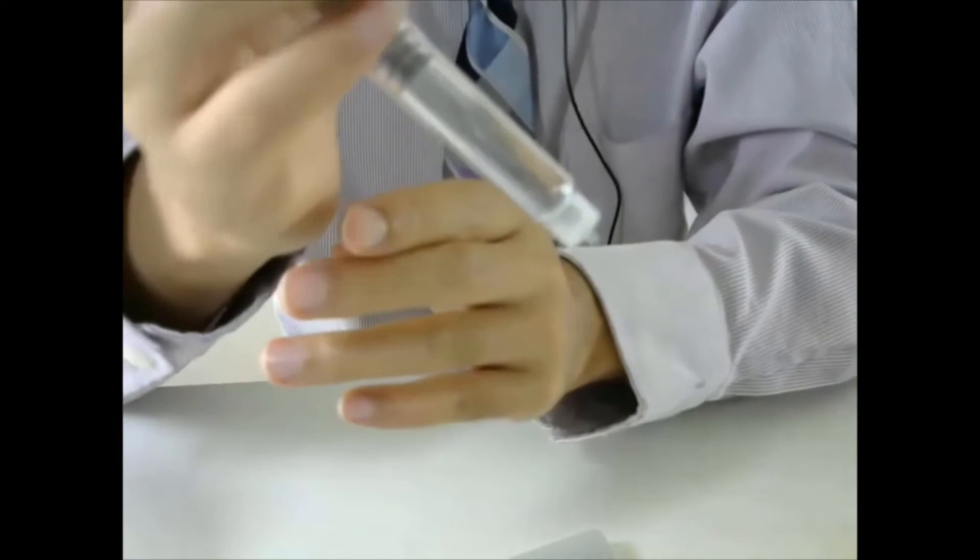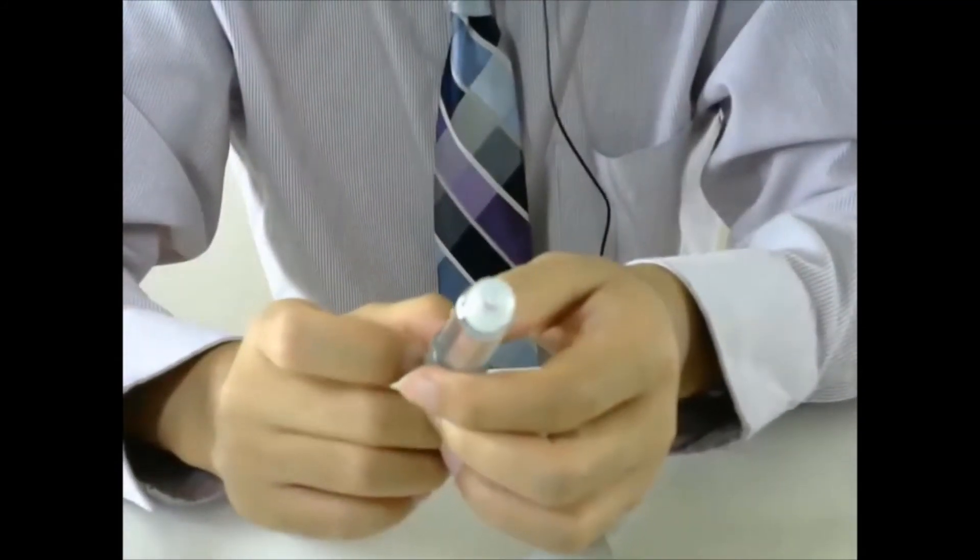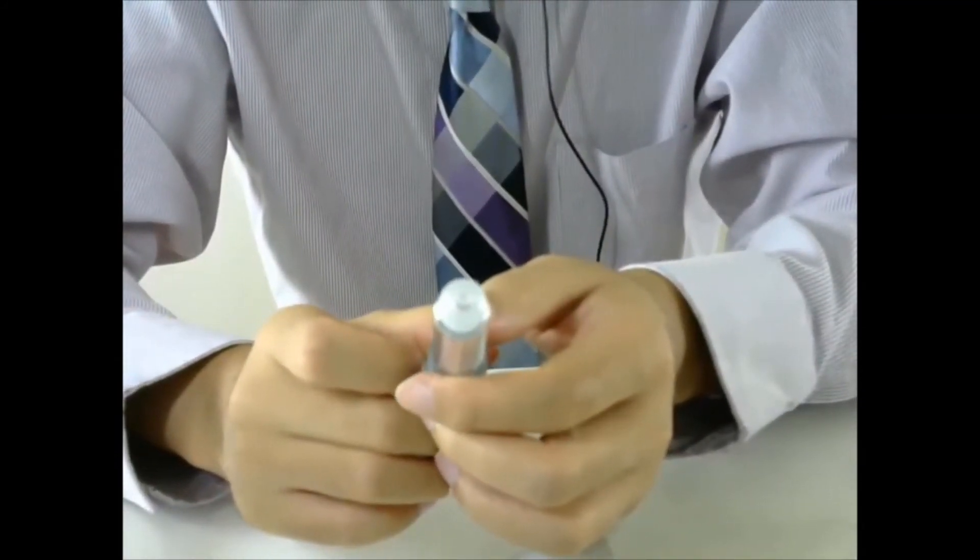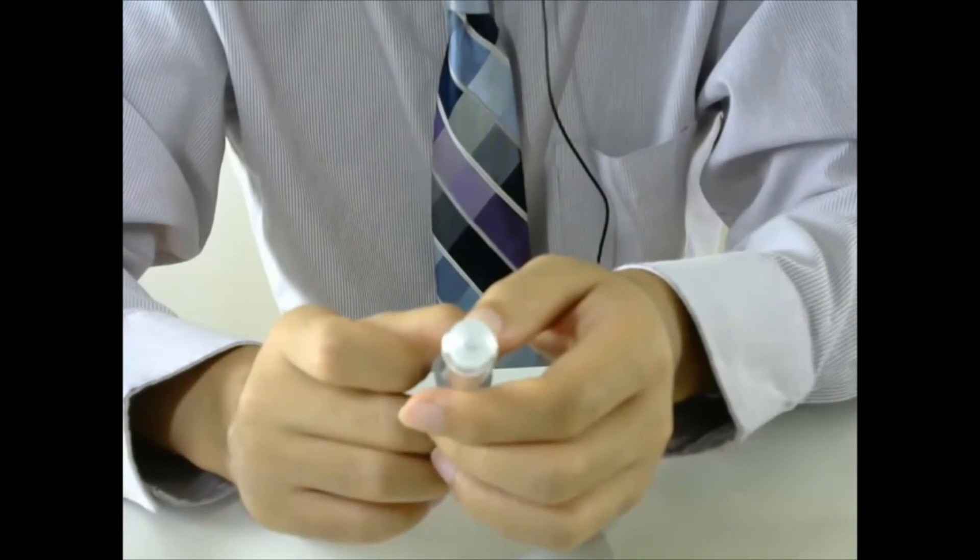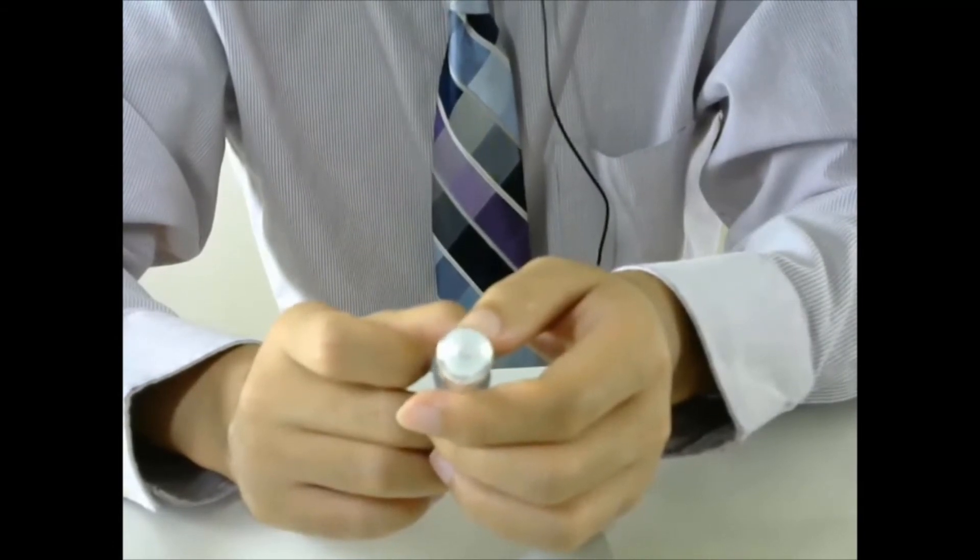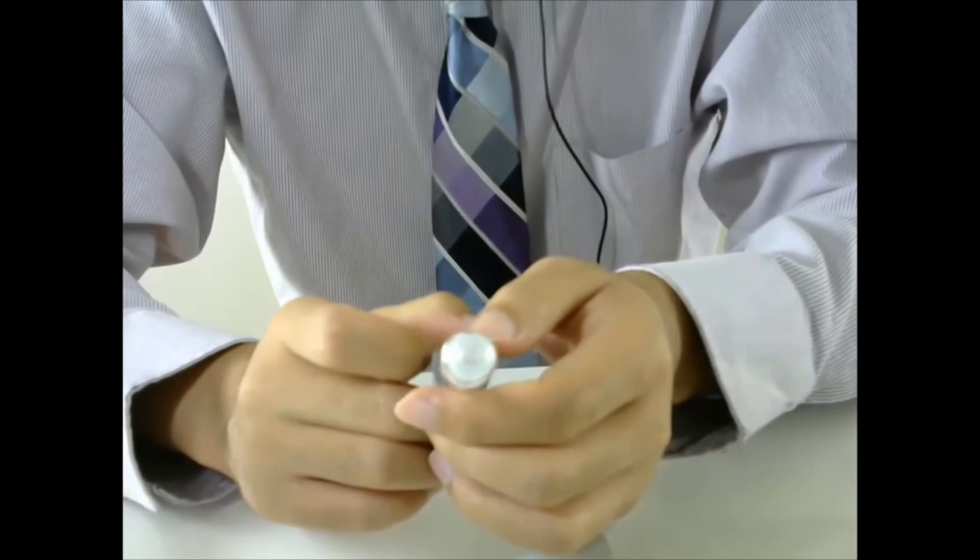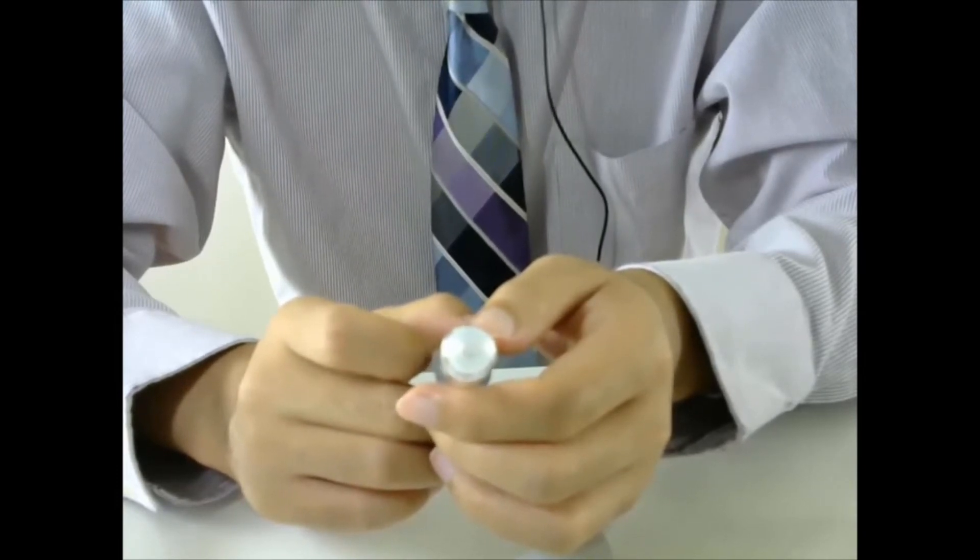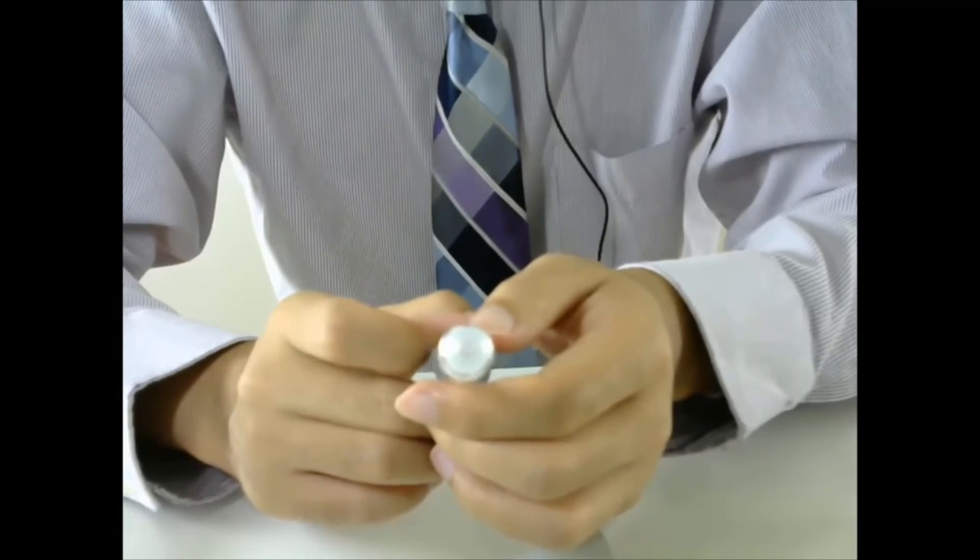And remember, you should rotate your injection sites every time so that your skin does not get hard or thickened. Because if that happens, the insulin will not be absorbed. So always rotate your injection site every time.